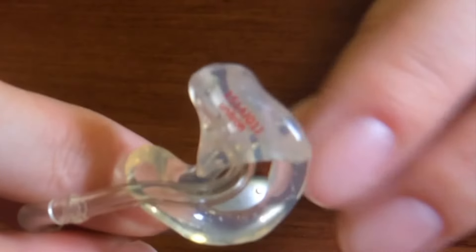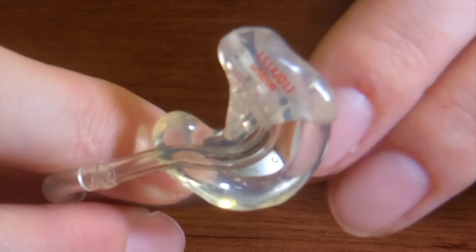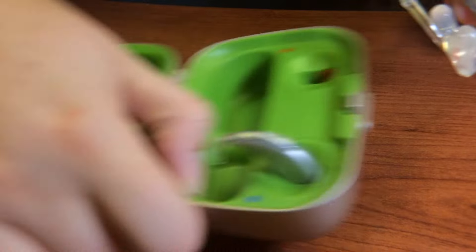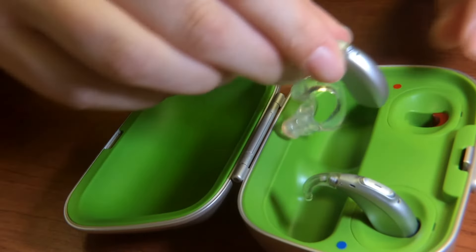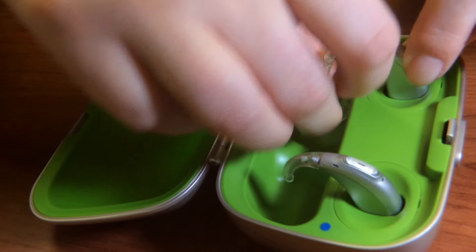If it is a rechargeable hearing aid, you will see the contacts that go down into the case. This is the case, the contacts will connect into the charger like this.